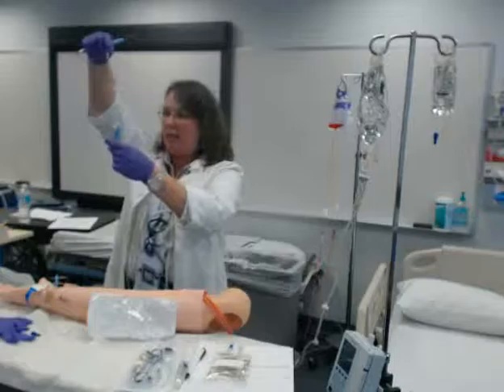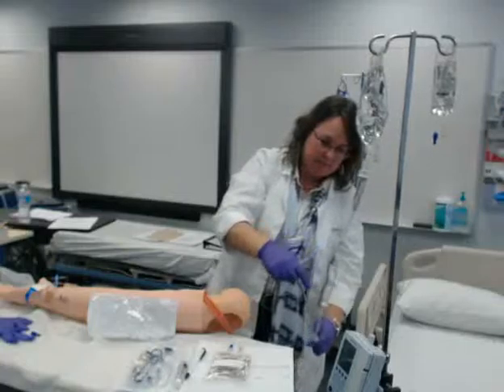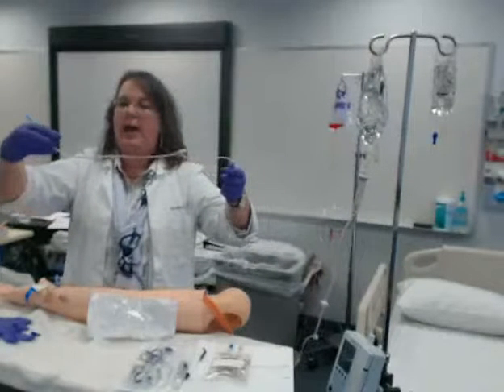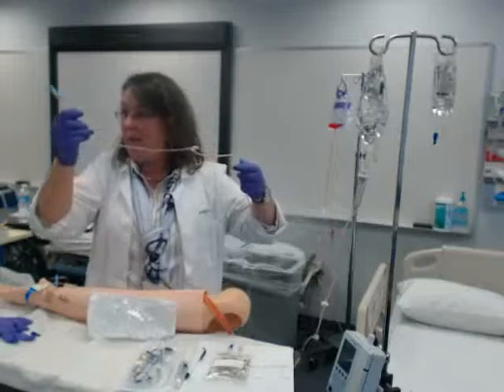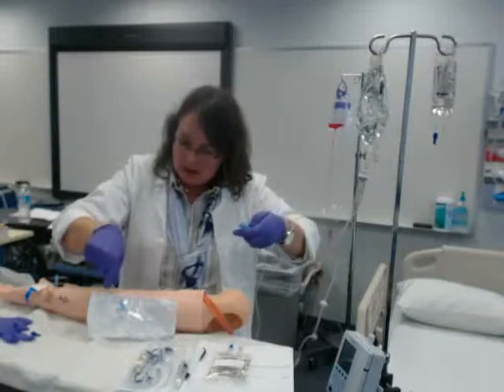I need to invert my ports because there's air in here when the fluid is coming down. So I'm going to open my tubing with one hand and invert my ports with the other. I'm going to open it slowly — it'll start dripping. And then as I get more comfortable, I can be faster. When the fluid goes through there, I can flip that one over. I'm watching my tubing come down, making sure that port's inverted.